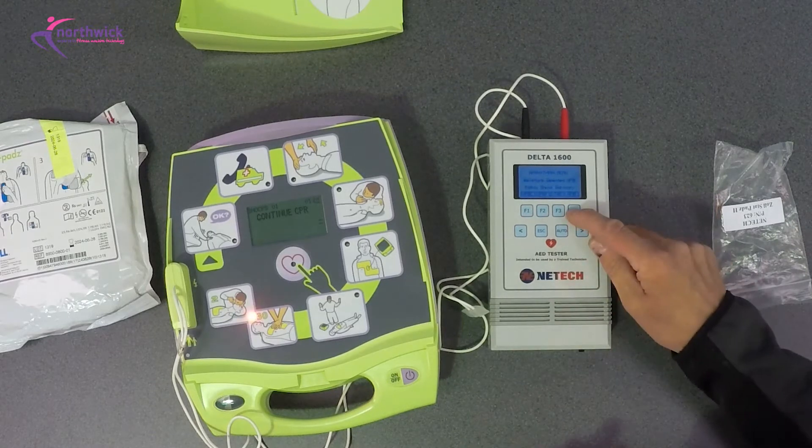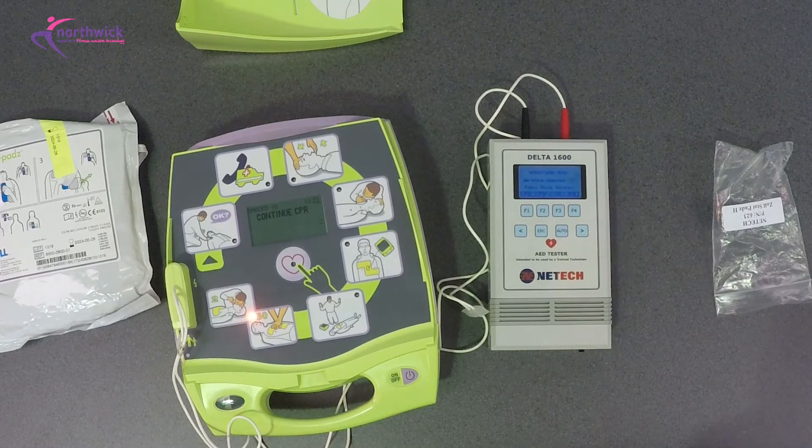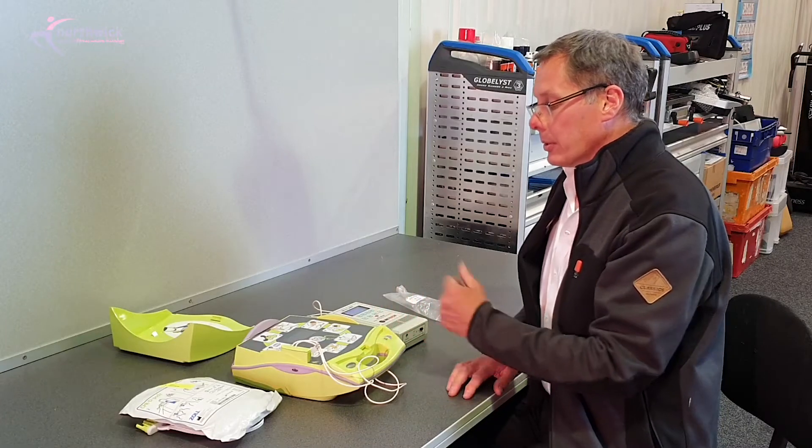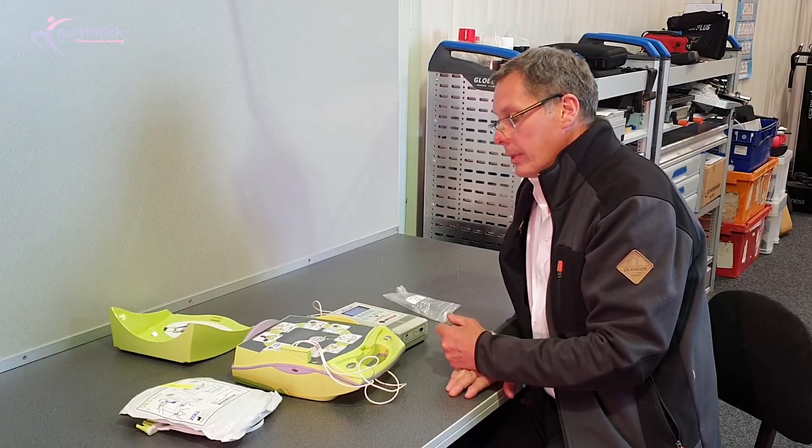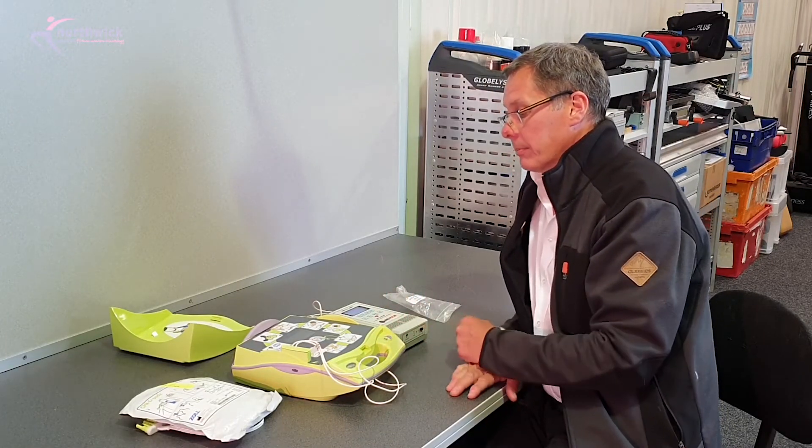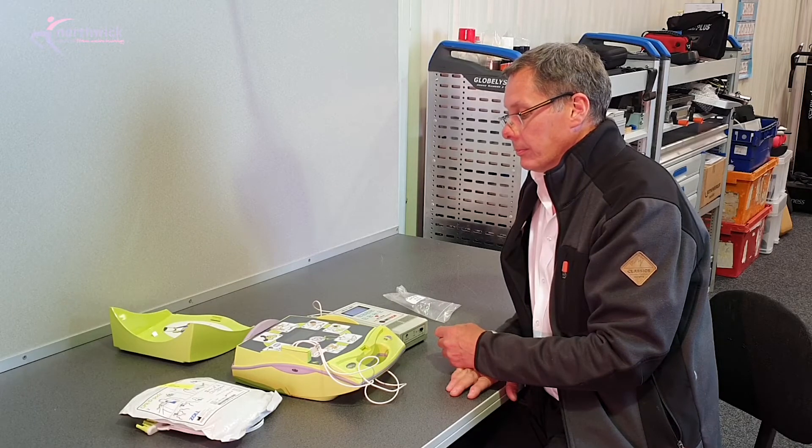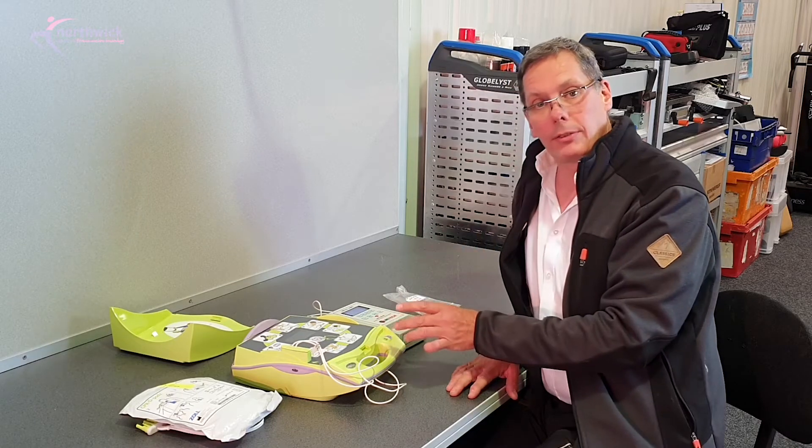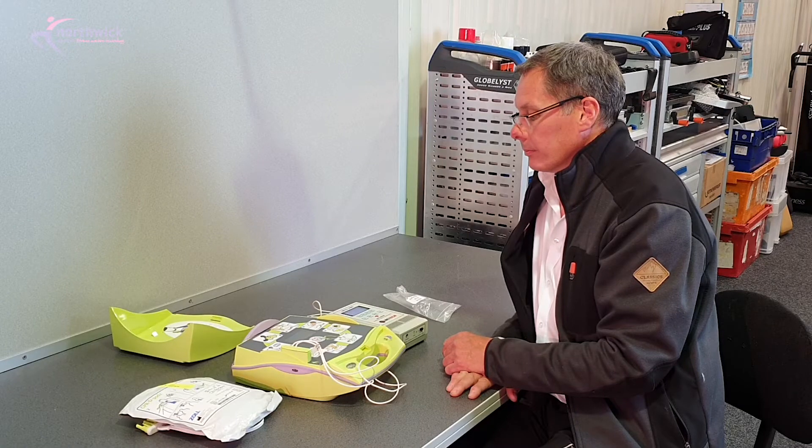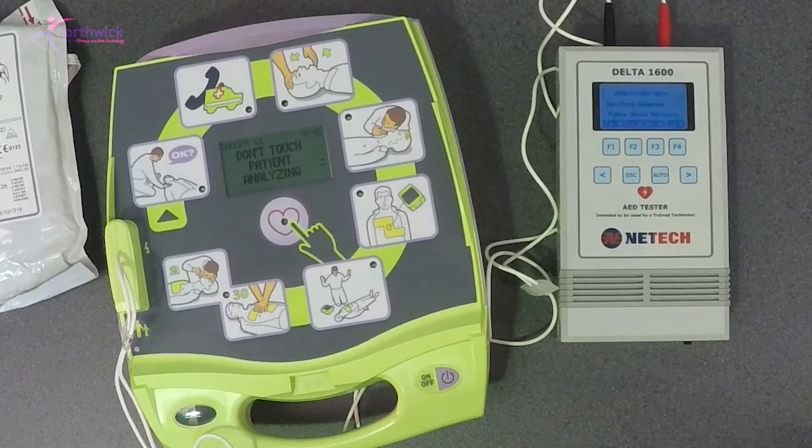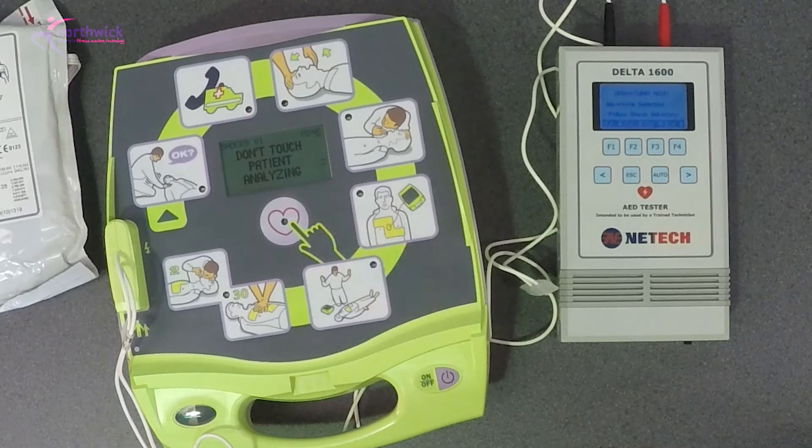Continue CPR. So at the end of the CPR cycle, the machine will recheck.